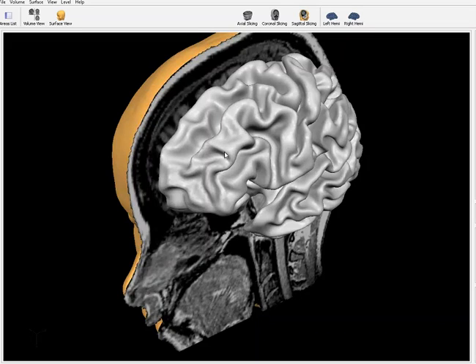This is a view of the new SW Loretta program that we are developing. It will be an add-on inside of NeuroGuide so that users can have an option to still use the Key Institute Loretta, and in addition, use this new method called SW Loretta, developed by Ernesto Soler, who is working with Applied Neuroscience and is helping to implement this series of programs inside of NeuroGuide.